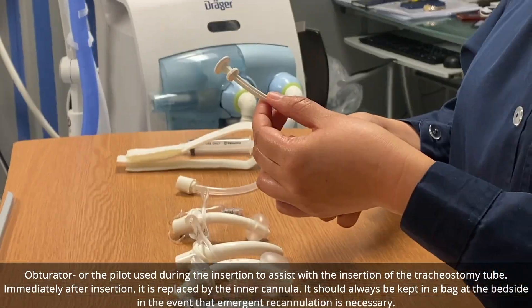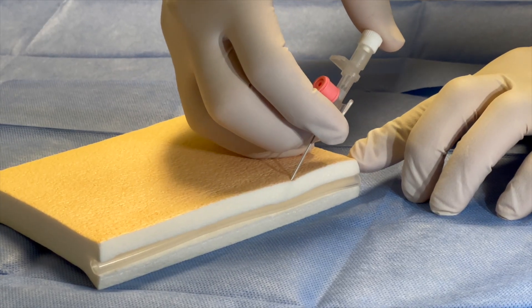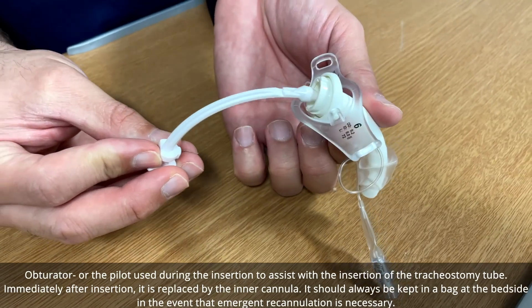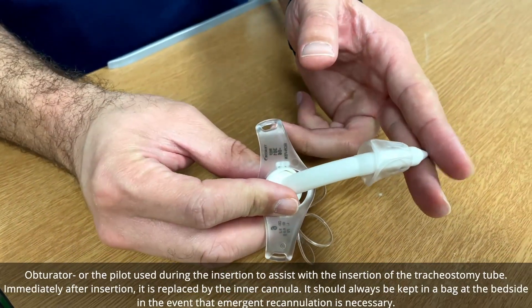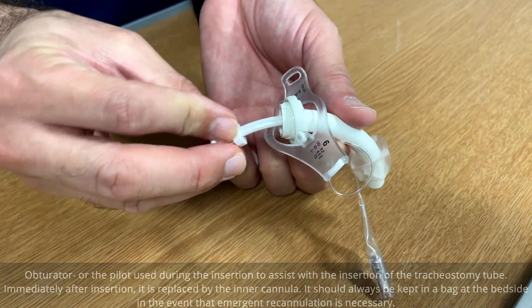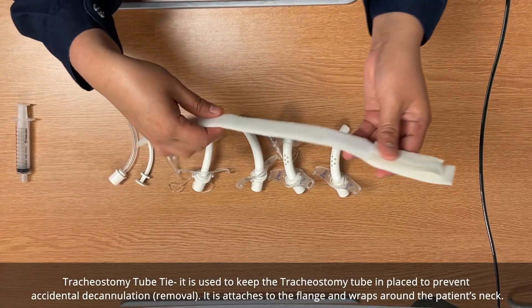The tracheostomy tie keeps the tracheostomy fixed inside even when the patient moves. The obturator — similar to the stylet inside a cannula — is used during insertion to assist placing the tracheostomy. After insertion, it is immediately removed but kept nearby in case of emergency and the need to re-cannulate.